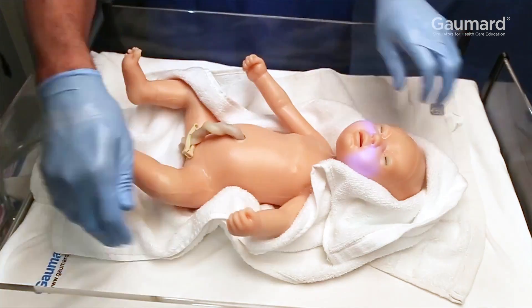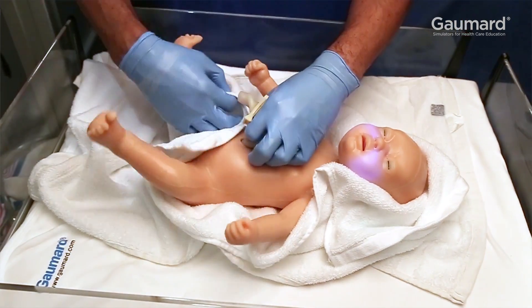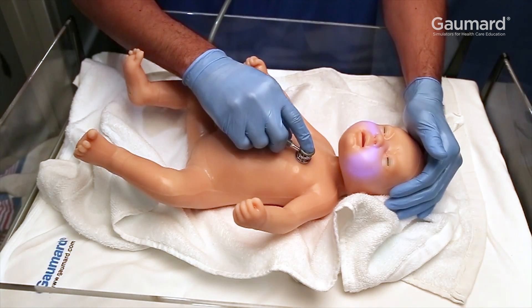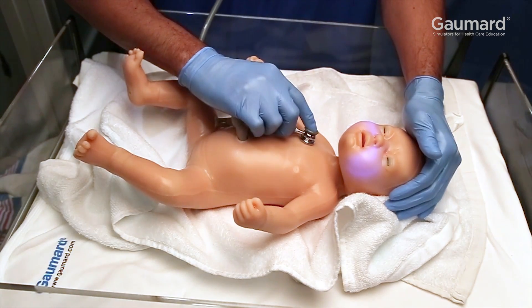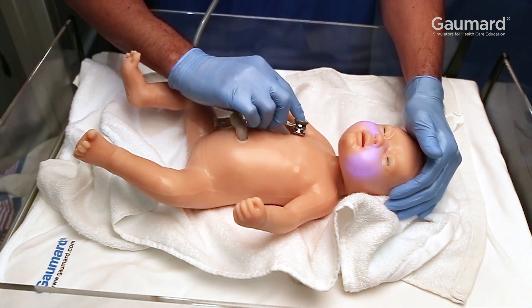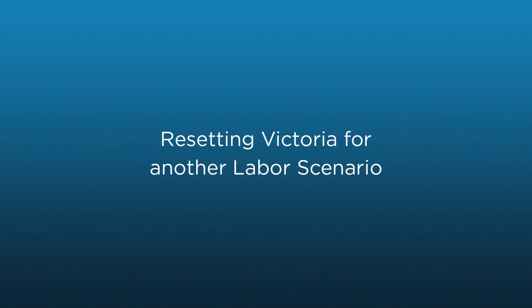The neonate can display cyanosis, crying, programmable heart and lung sounds, and realistic head movement. It will play whichever vitals were programmed during the labor for the duration designated by baby run time.